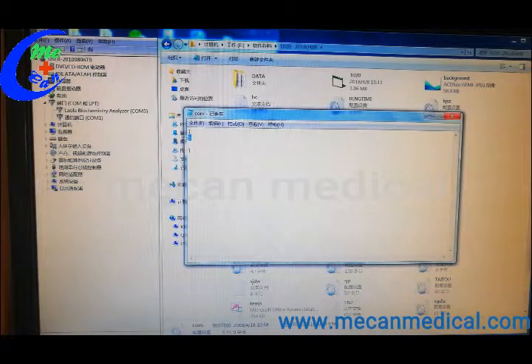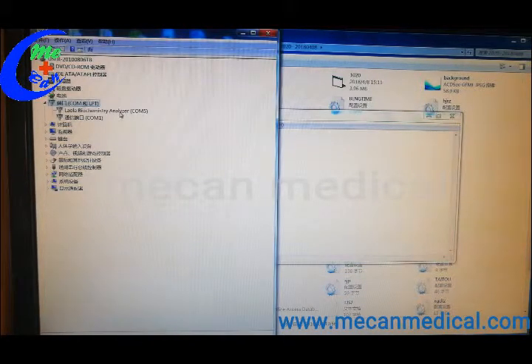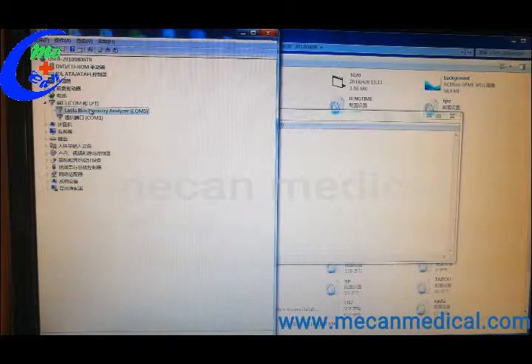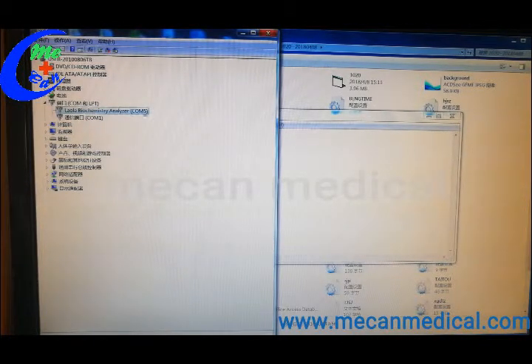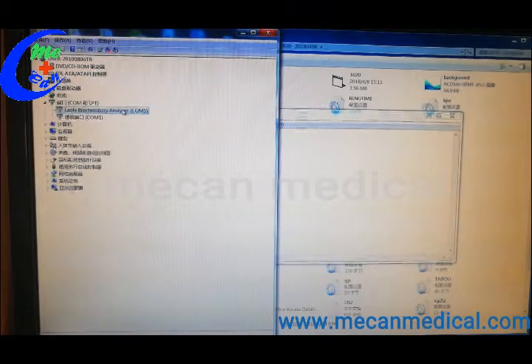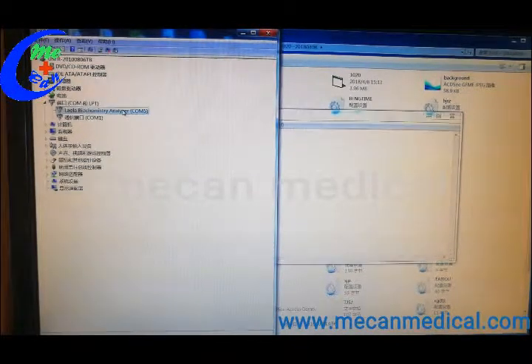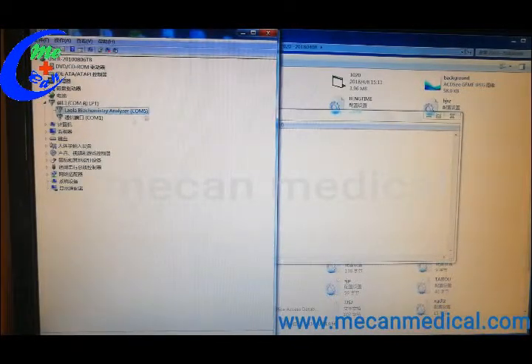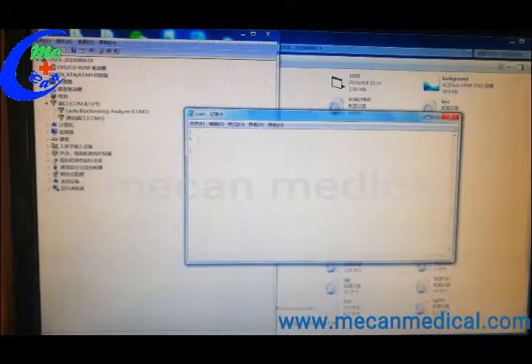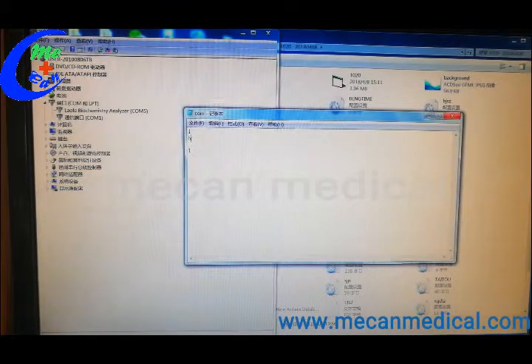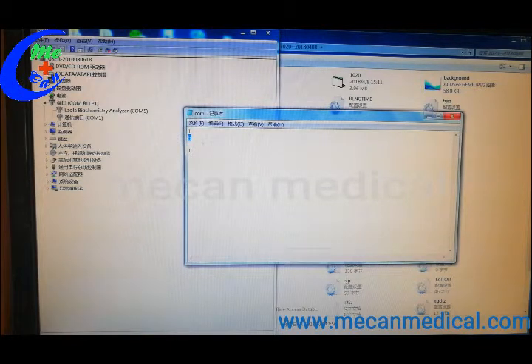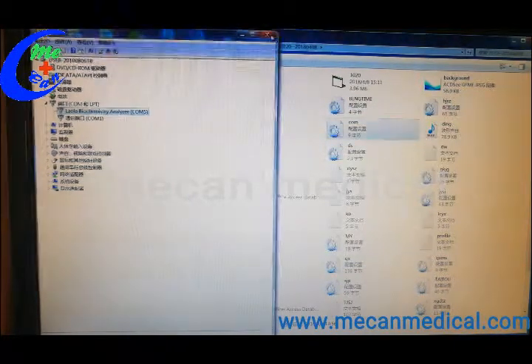The second line, this number should be sent as the COM port in the device manager. You can find here when you connect the machine, then you can find the COM port to show here and change to this. If this one is 3, then change to 3. If this one is 5, then change to 5 and save it.